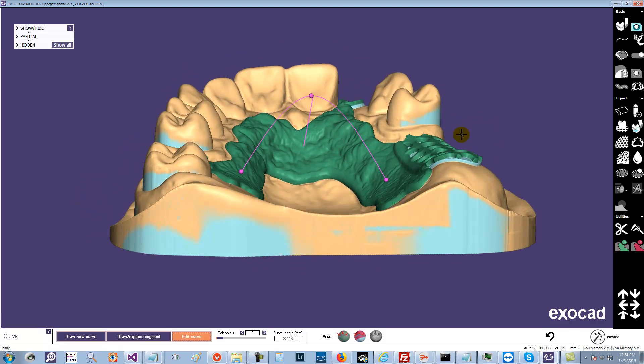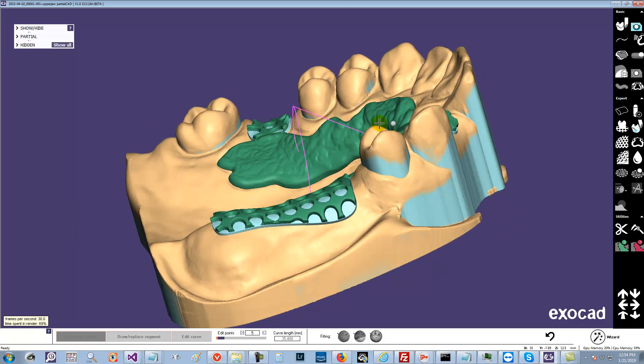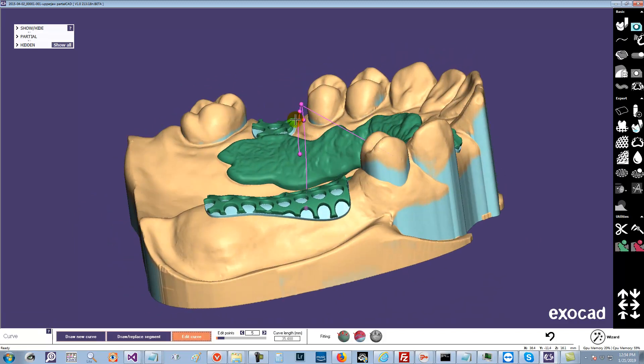The next trick is you add a couple more points — let's say here and here — and you bring them down a little bit like that. This sort of gets you the equivalent of a tangent tool. Remember, also, I was holding down the Shift key. You might get a little weird distortion, but you can adjust that easily and add a little bit of a curve to that tool as well.